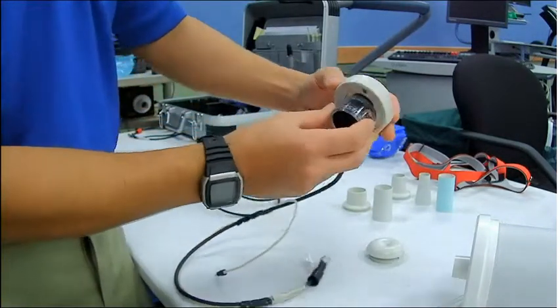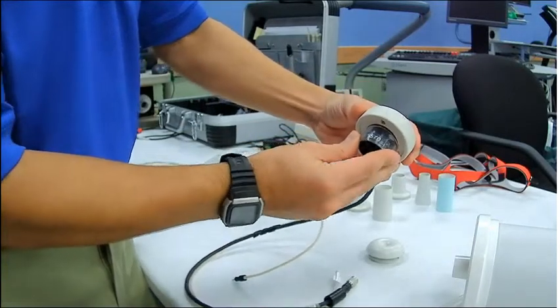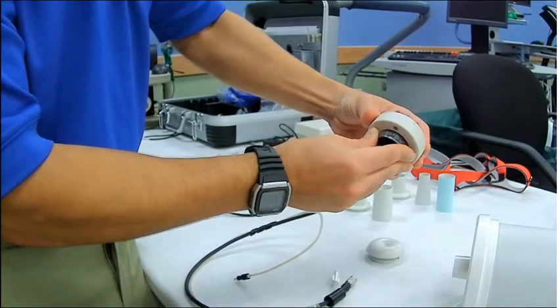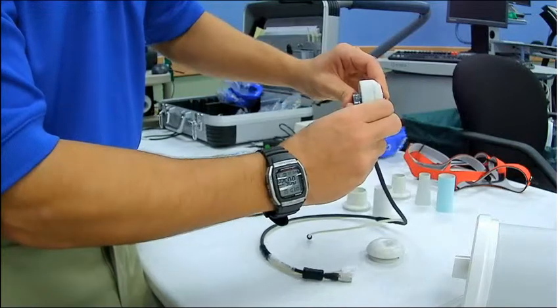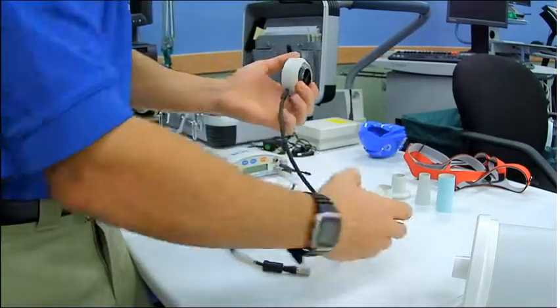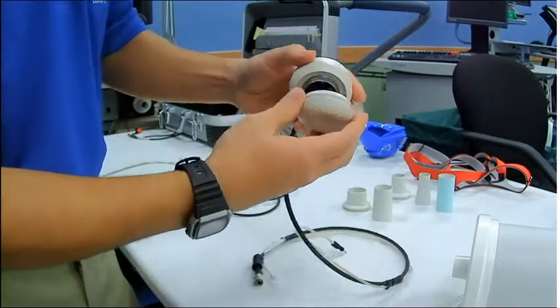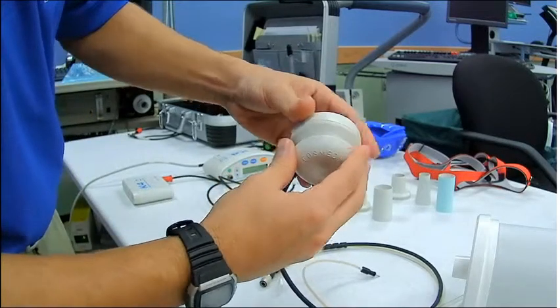And what you do is push the side with the drop off in so that the cap can come onto it.